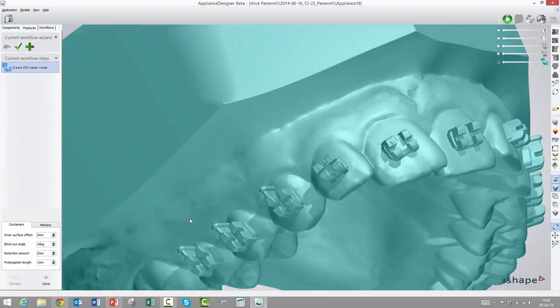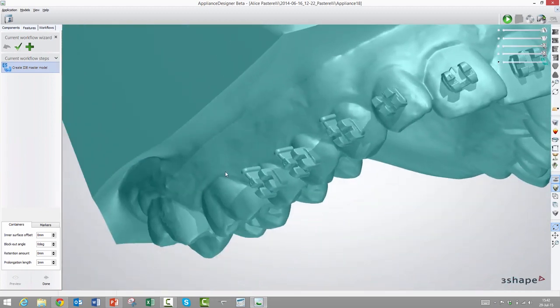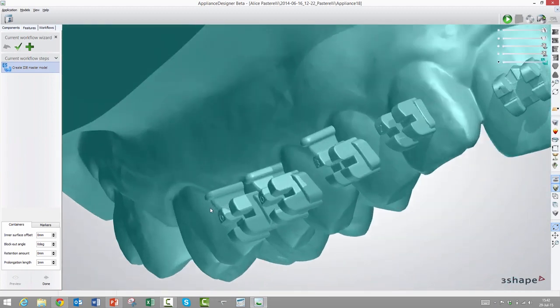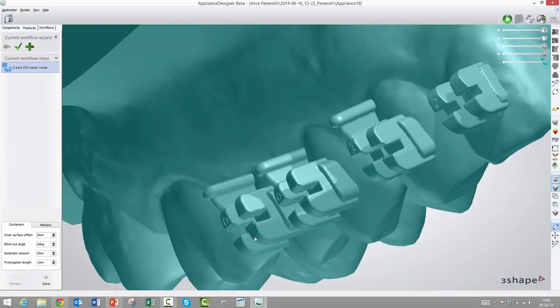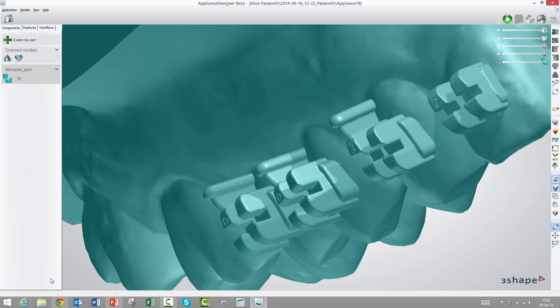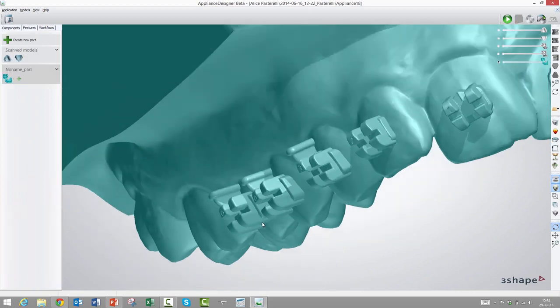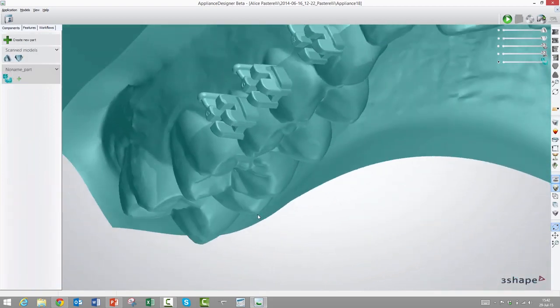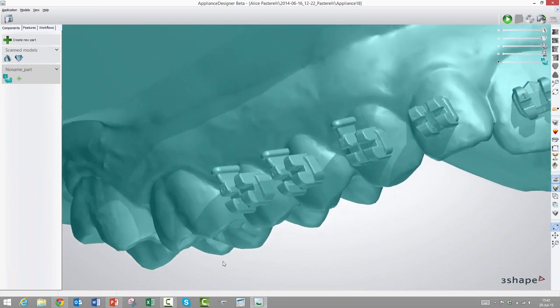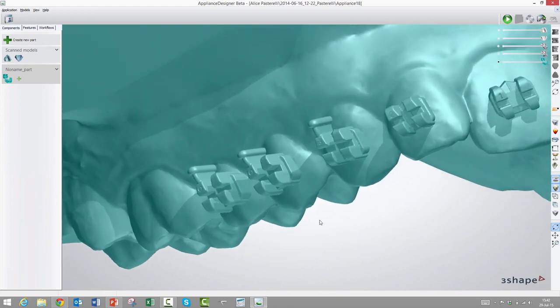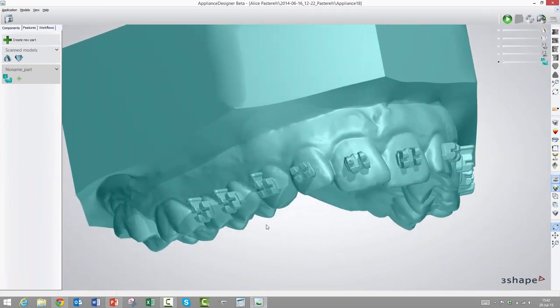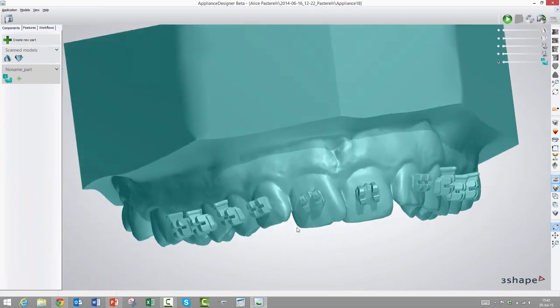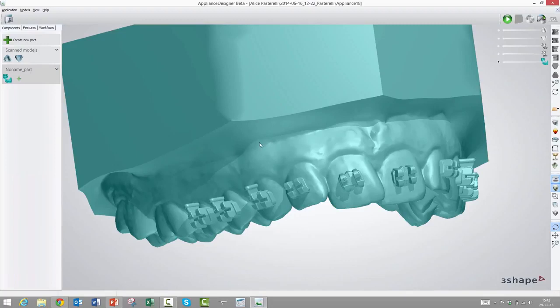Sometimes the bracket will rest on only three or four points on the tooth surface, and there might be a little hole underneath. This prolongation length will sort of extend the bracket base into the tooth according to this parameter. So if we have a patient with some very thinly worn incisors, then maybe we need to reduce this to 0.5 millimeters or another value. But this default value, we haven't found a case yet where it doesn't catch it, but it's offered for users to know that they can change it if they find the need. The really nice part of this is that now you don't have to waste time to protect the hooks and wings with silicone drops. You thermoform on top of this and then it's ready to insert the brackets right away and then seat them in the mouth.